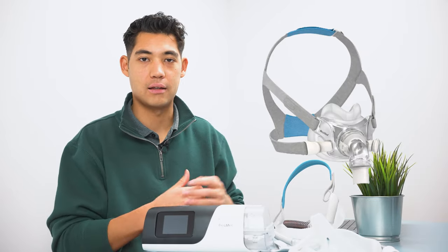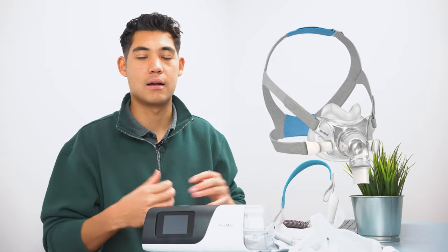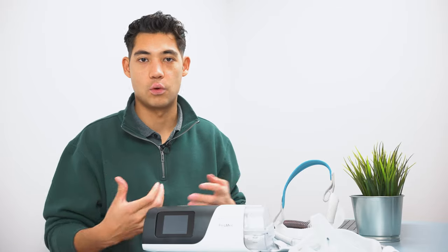The next thing is type of mask. So in times where you do have a plugged nose, you should have a full face mask. You should always keep a full face mask on hand for when you have allergies or when you're sick or something like that, just to use that as a relief mask every once in a while.